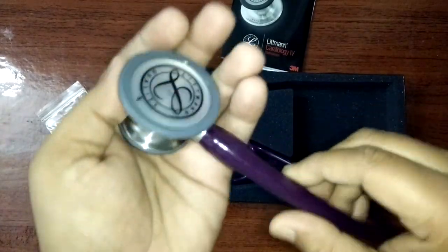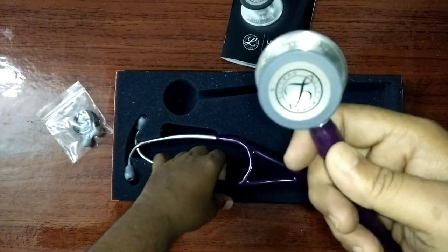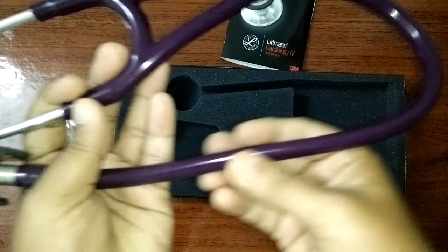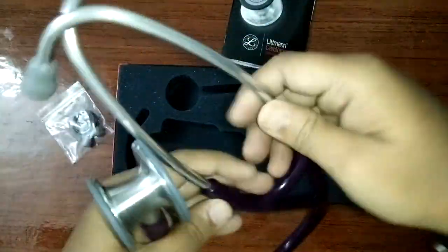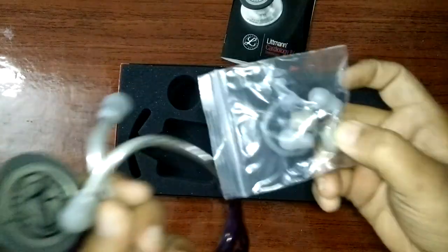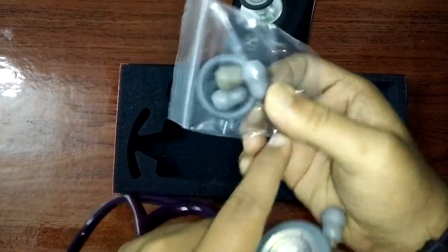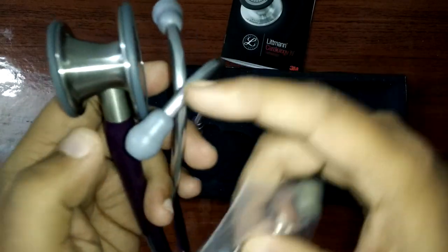Sorry, I don't know how to use it or what the experience with it is, because I'm not a doctor or nurse. It looks good — nice and soft, shiny. The soft one has a soft finish; the hard one you can replace. This one is a little bit smaller than the pre-installed one.